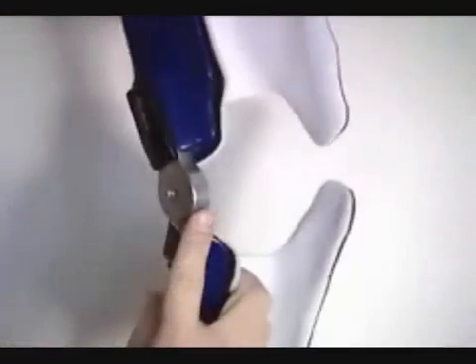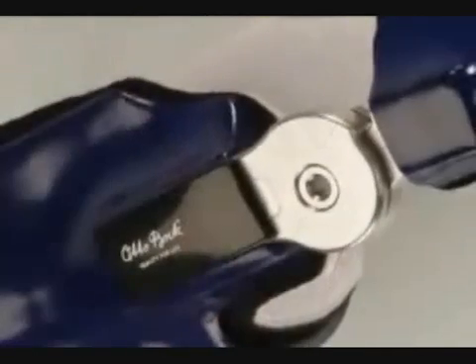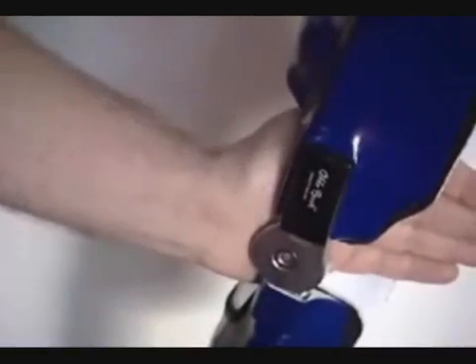The joint offers yet another advantage in everyday use: it is designed as a closed system. This prevents clothing from getting caught in the joint, which could otherwise damage the fabric and result in unsteady movements. In addition, this closed design protects the joint mechanism against external impacts.